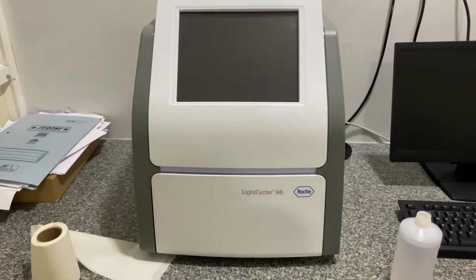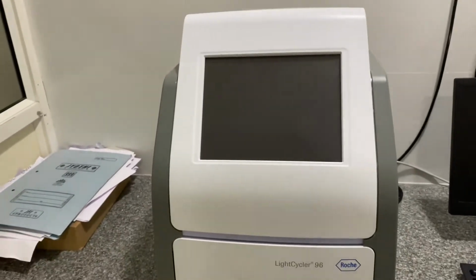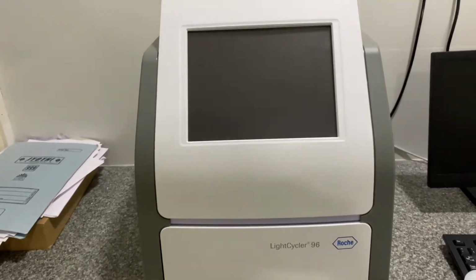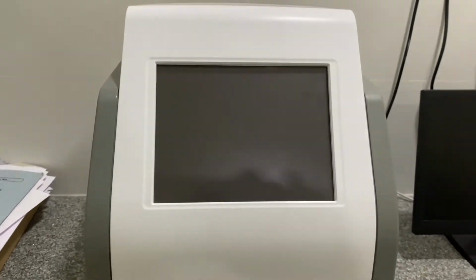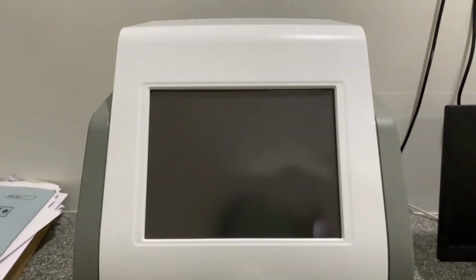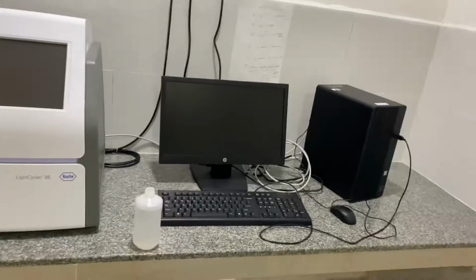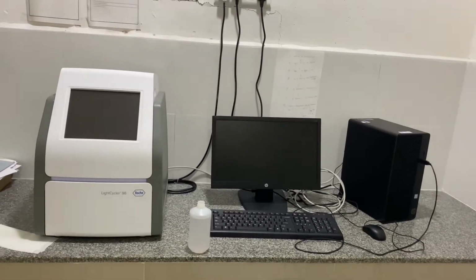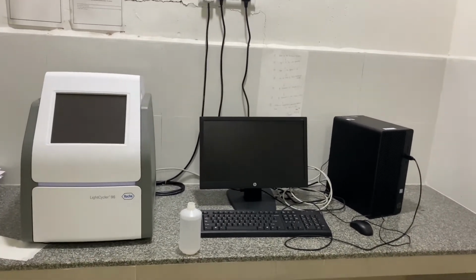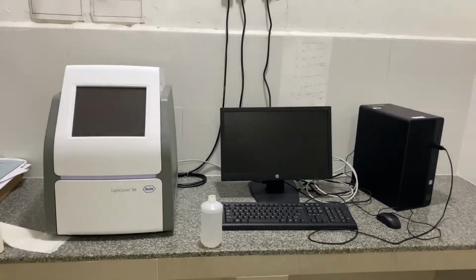This is the PCR machine. After doing the procedures for all the samples that I have shown you, we have to keep them inside, and then it starts again. It will take 1 hour to 2 hours depending upon the samples, and after that you read the results on the computer. So that's the procedure of the COVID-19 RT-PCR test. It is actually a very big procedure, and there we get positives and negatives.